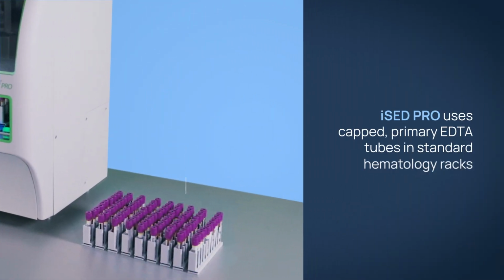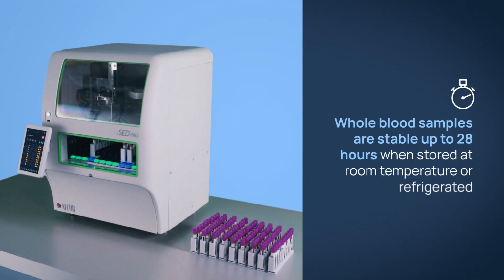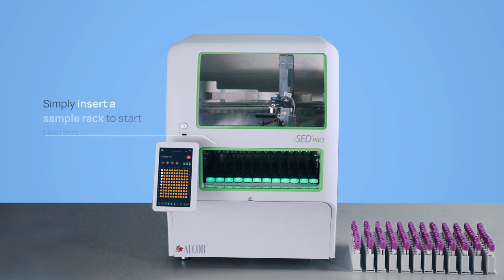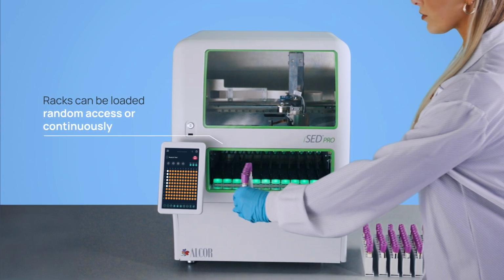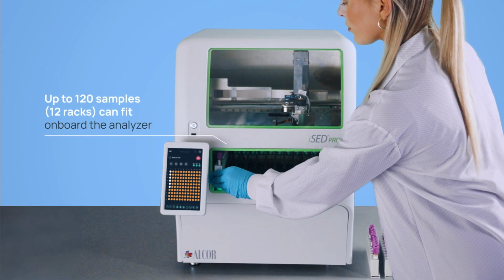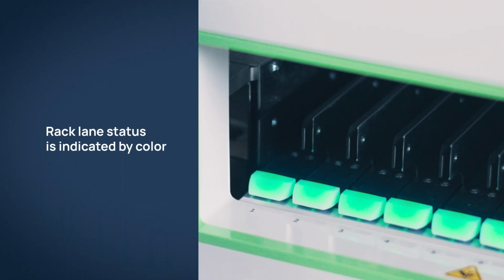iSED PRO uses capped, primary EDTA tubes in standard hematology racks. Whole blood samples are stable up to 28 hours when stored at room temperature or refrigerated. Simply insert a sample rack to start testing. Up to 120 samples can fit on board the analyzer. Rack lane status is indicated by color.